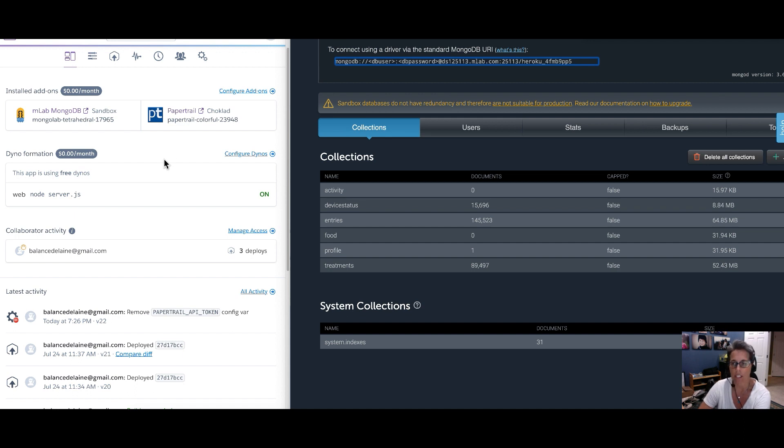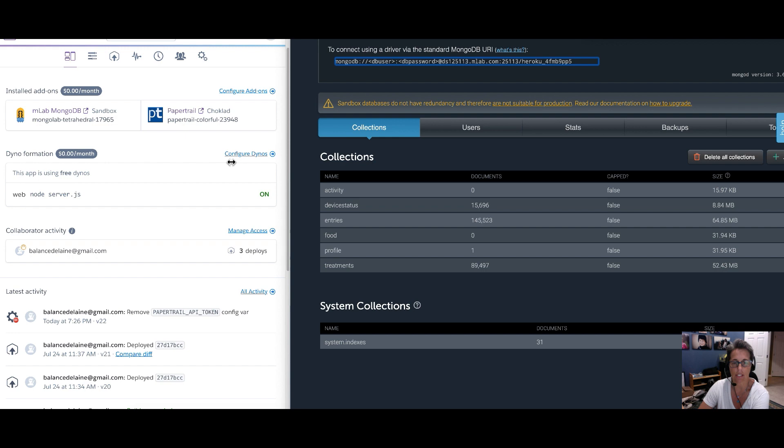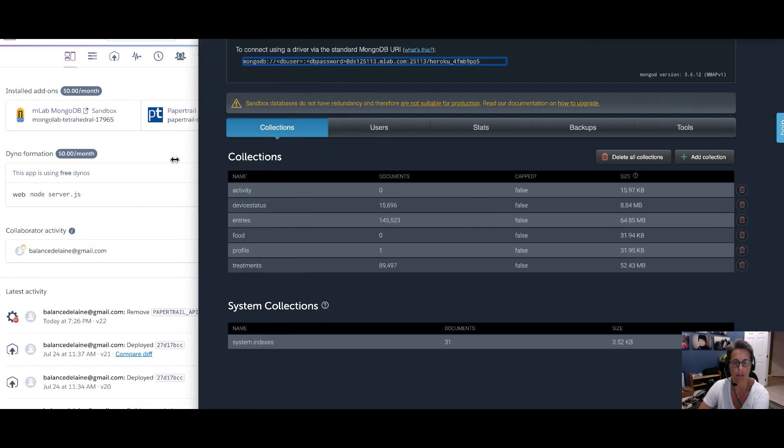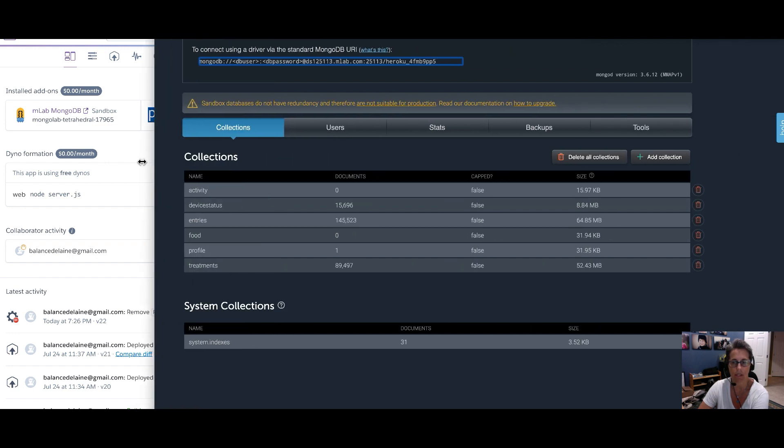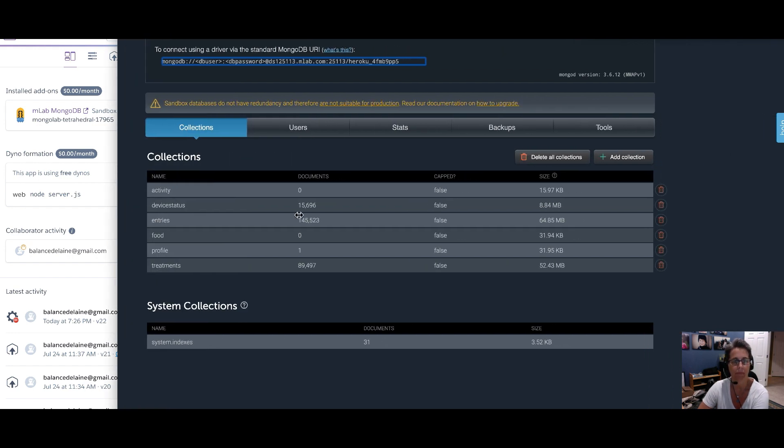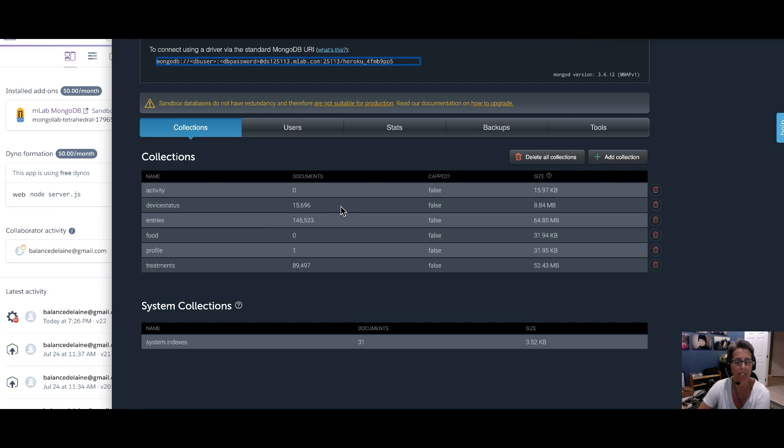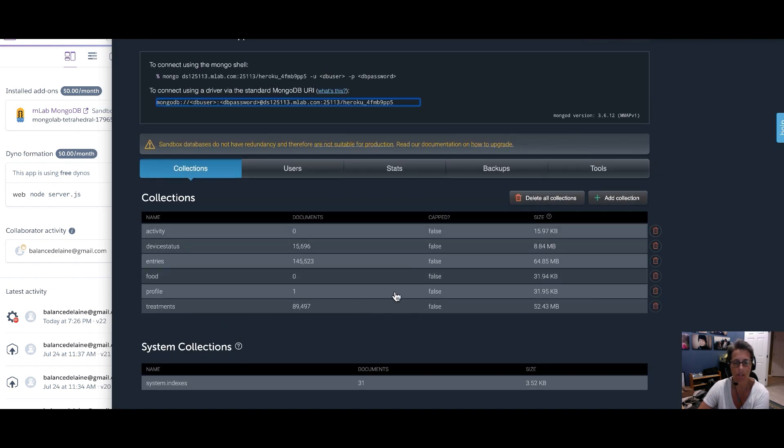We log into your Heroku account. And then on the front page of your control panel on the overview tab, you're going to have your MongoDB database. And if you click on this, it's going to open your database into a page that looks like this one. So I'm just going to pull this over so we can see it a little bigger. And basically this shows all the different categories of data that's stored in your database.